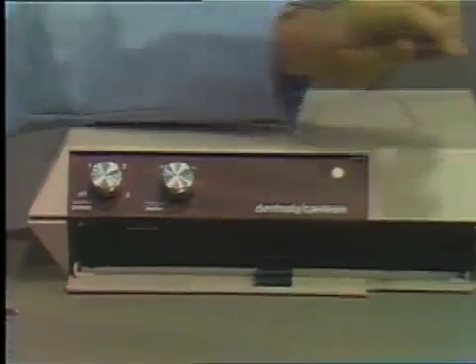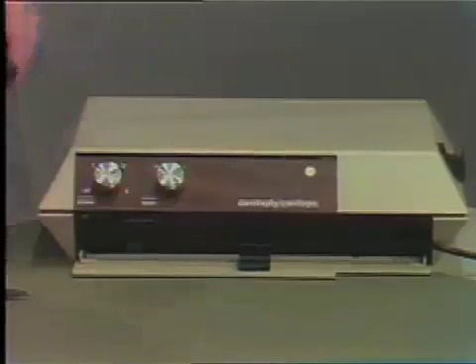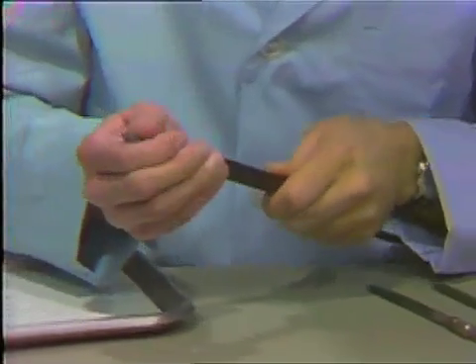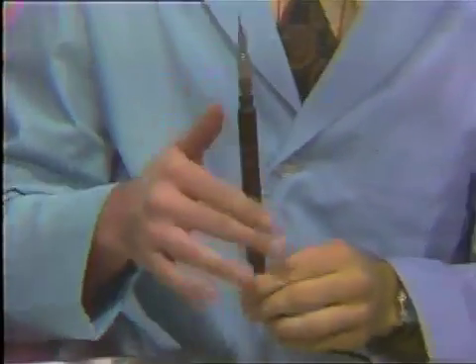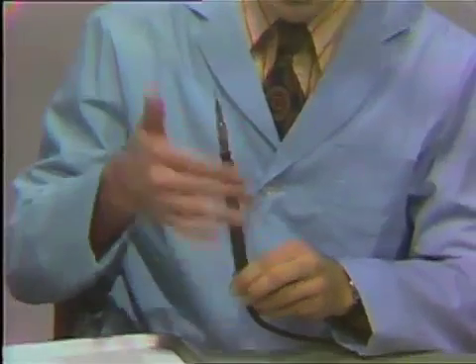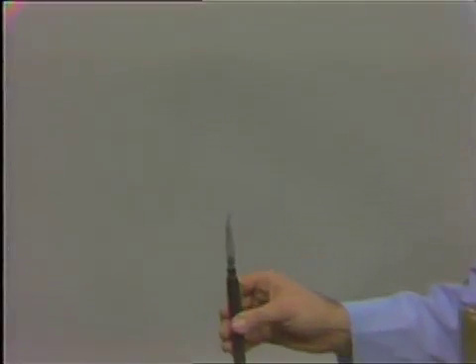The handpiece is inserted in the unit here. When inserting the handpiece, you'll find that it traps a slight amount of air in the column. Whenever you change handpieces, it's important that you bleed this line of air — this is done by holding the tip in an upright position until water has a chance to run through the line.